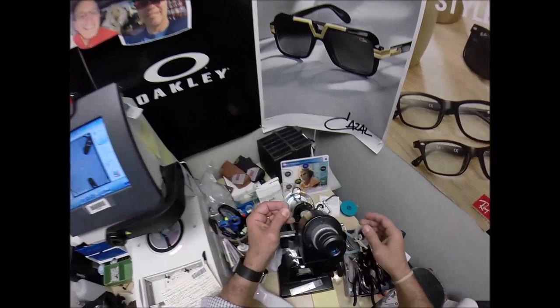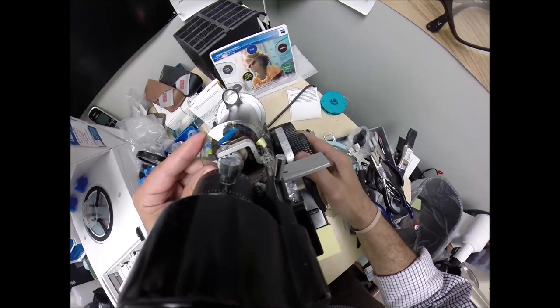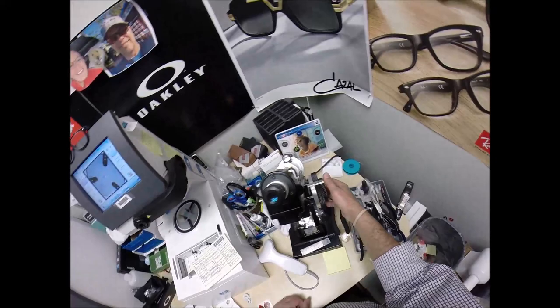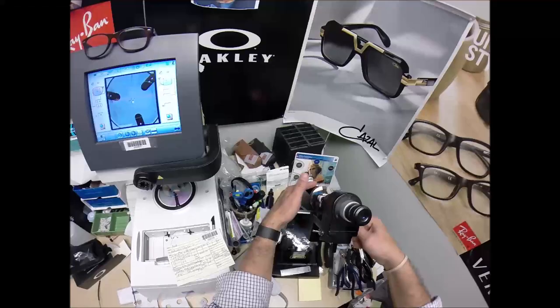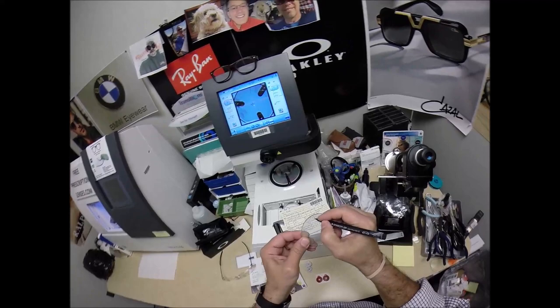At 170, I put the power drum on minus 2 and a quarter. It's nice when they put an L on the lens — it tells me which way to orient it without having to rotate to find where the top is. 2 and a quarter, minus 3 and a quarter — so that means we have one diopter of astigmatism correction. Let's put some dots on the lenses and put an L on there.